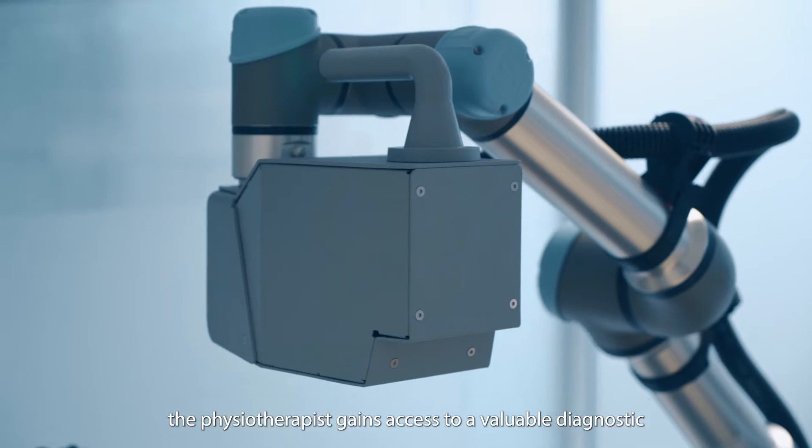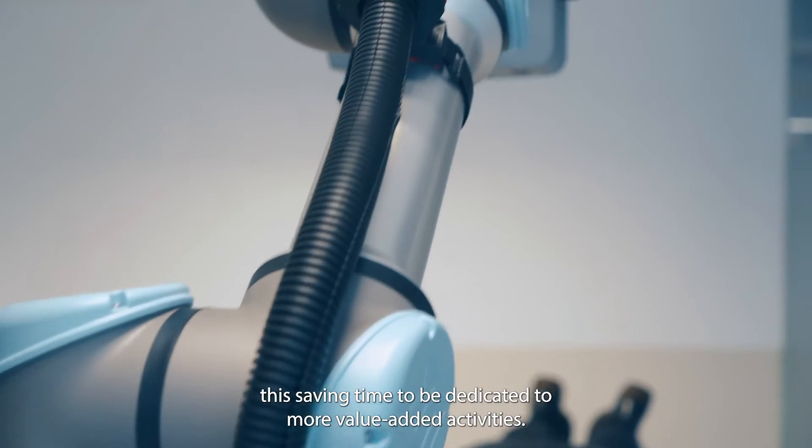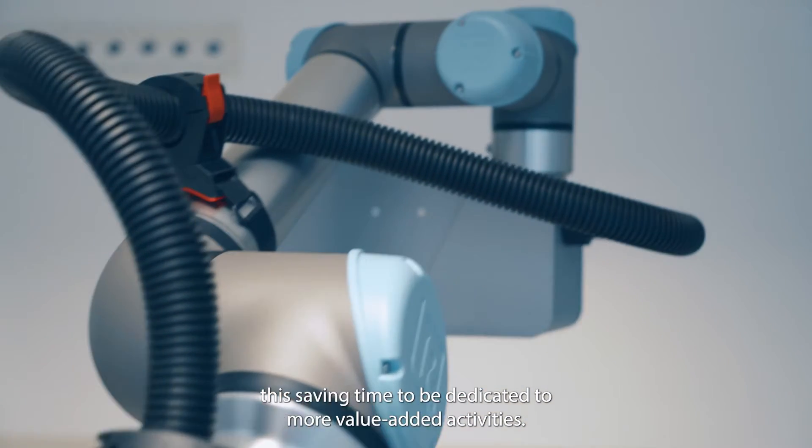Finally, the physiotherapist gains access to a valuable diagnostic and follow-up tool, thus saving time to be dedicated to more value-added activities.